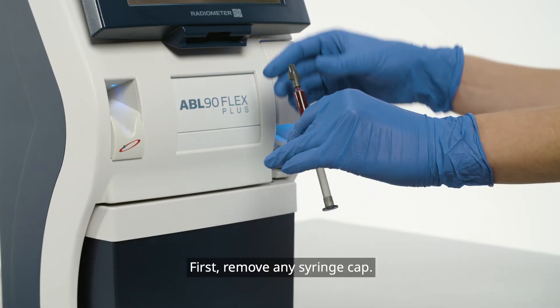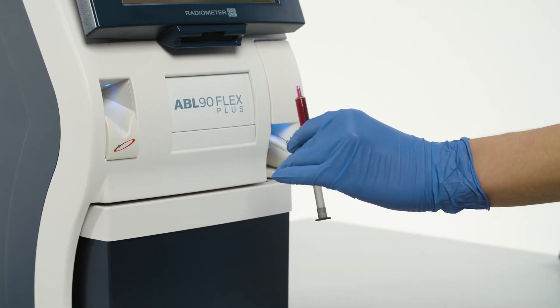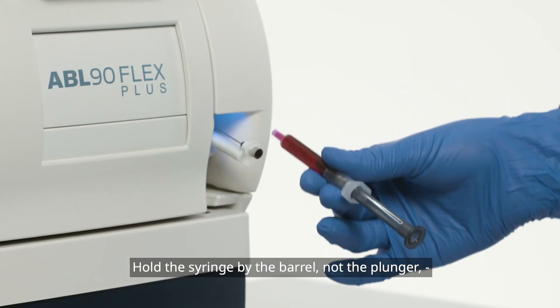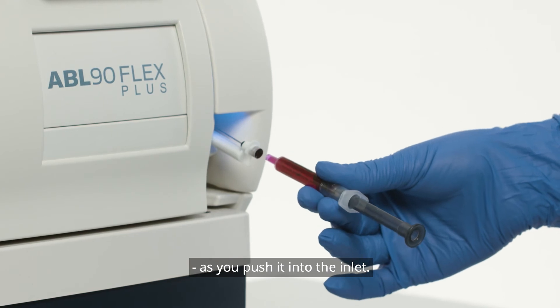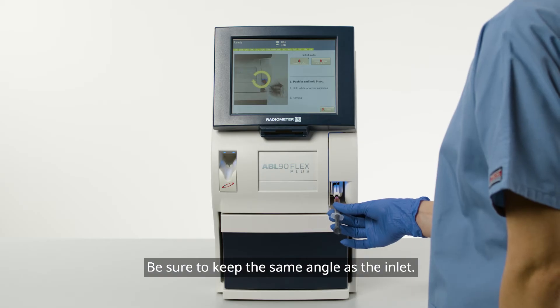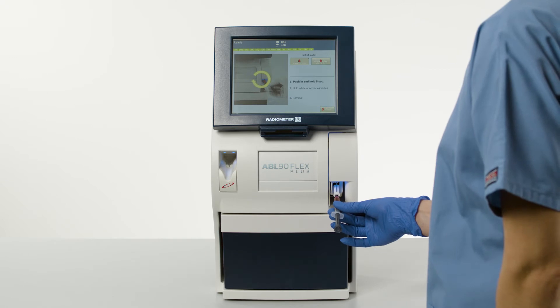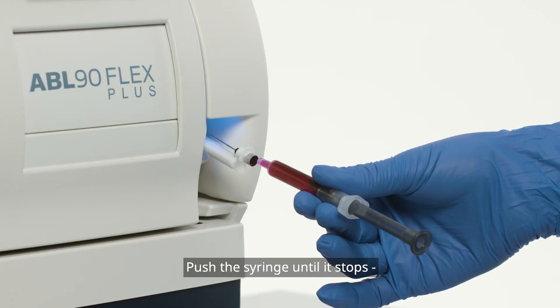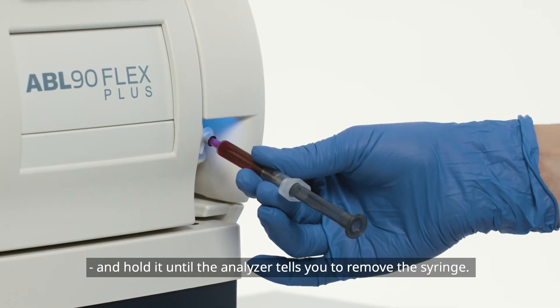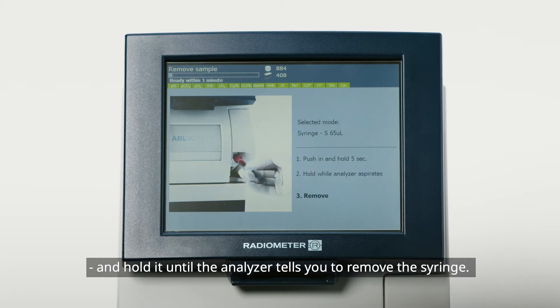First, remove any syringe cap. Hold the syringe by the barrel, not the plunger, as you push it into the inlet. Be sure to keep the same angle as the inlet. Push the syringe until it stops and hold it until the analyzer tells you to remove the syringe.